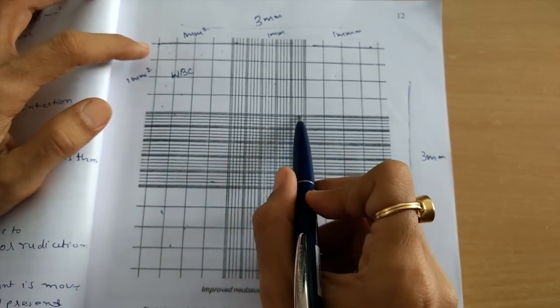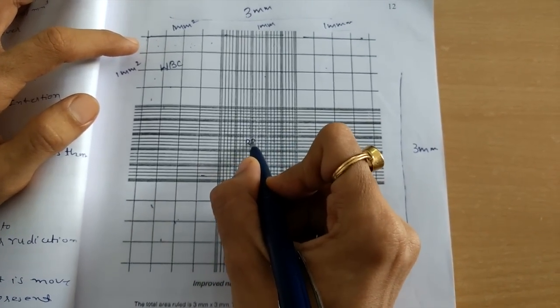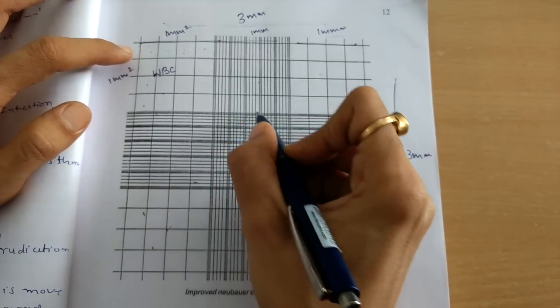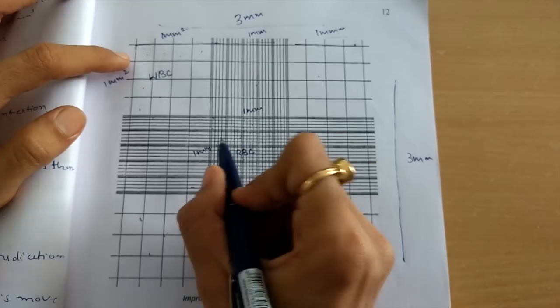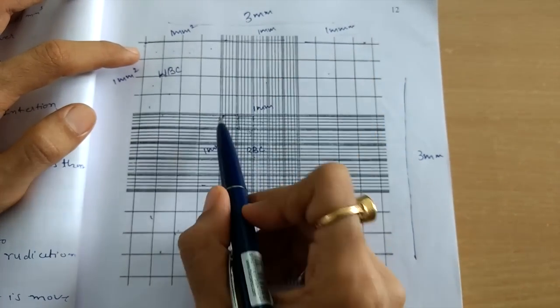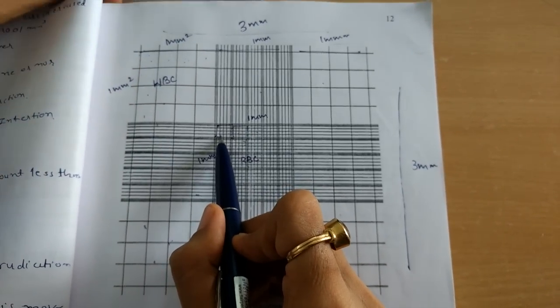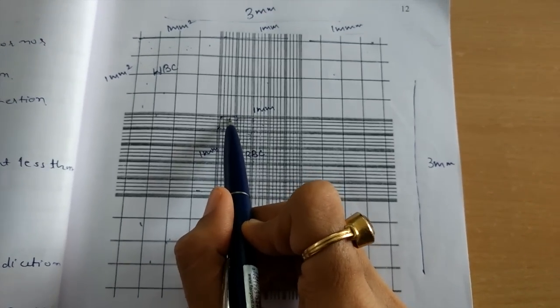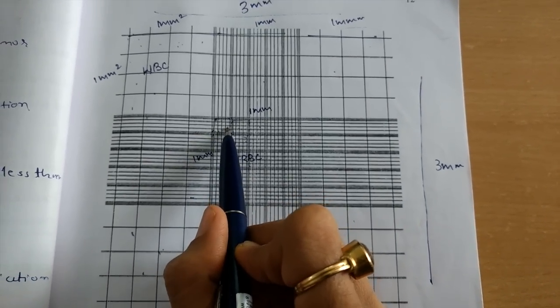Okay? Now this centrally placed densely packed square is for RBC. So this is known as the RBC counting area or RBC counting square. This central square, again the size is 1 millimeter by 1 millimeter, and it is further divided into 25 medium size squares. You can see here. These 25 medium size squares are separated by triple lines. These are the triple lines that separate them. Okay? These 25 medium size squares are further divided into 16 small squares each. You can see here in these 25 squares, we again have 16 smallest squares.